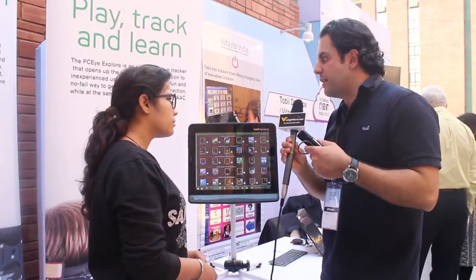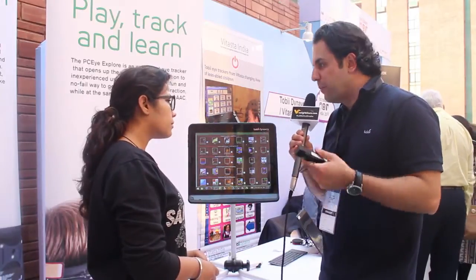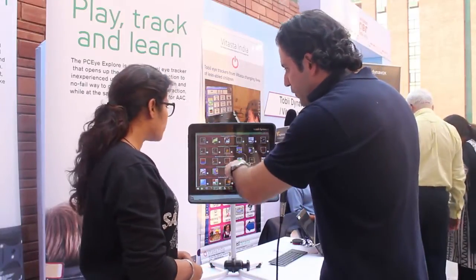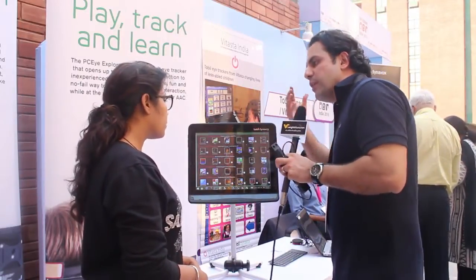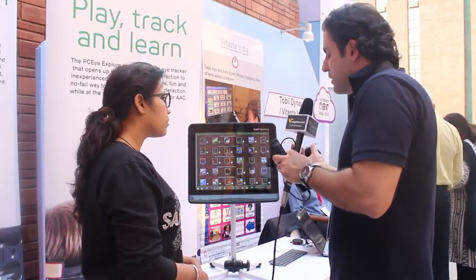Because if you're a child that has never been able to access anything, you have no idea what a click or double click means. We need to establish this relationship between your eyes and the computer. So we have developed software specifically for these tasks to teach children how to point with their eyes. Once this is established, you can give them more and more advanced symbol options, or even they can become literate.